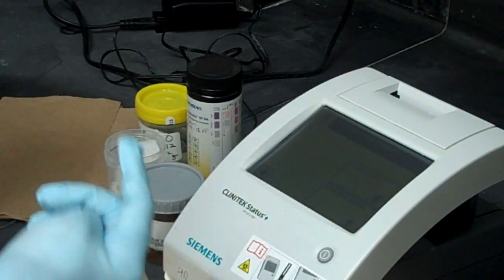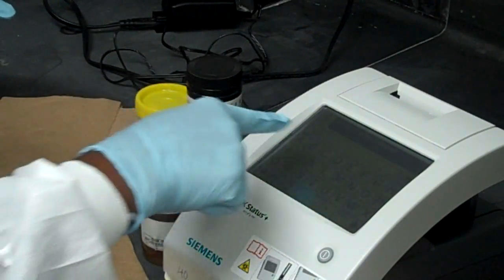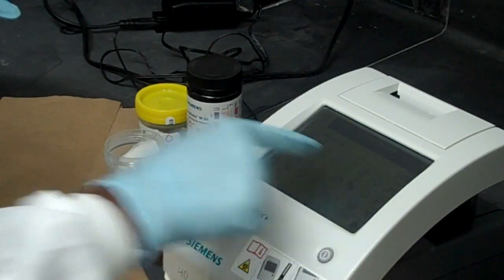Now enter new patient's name. So we select new patient. And we type in the patient's name. Press enter.